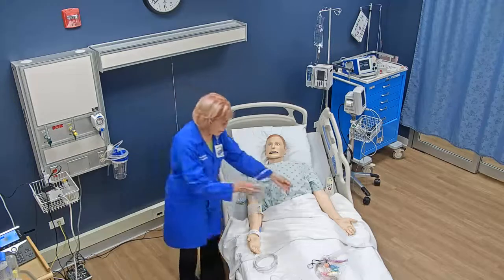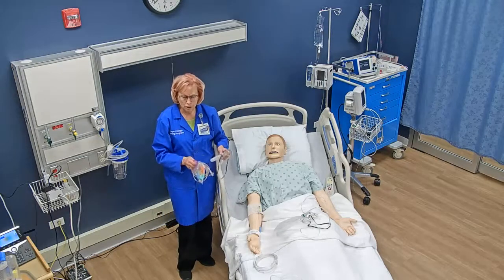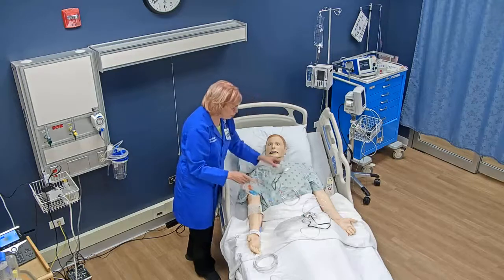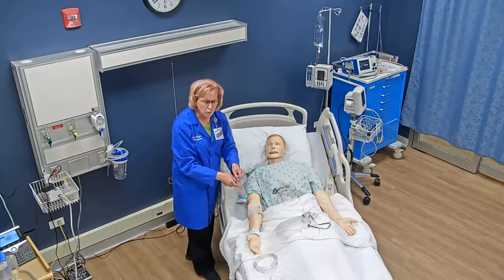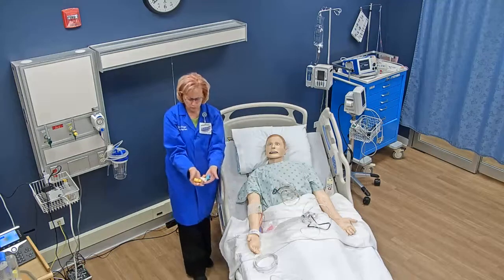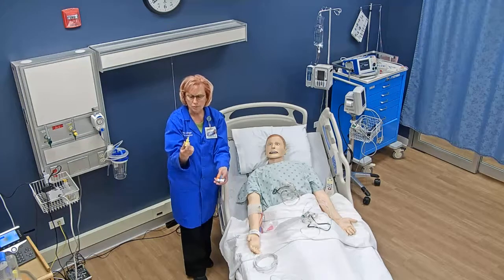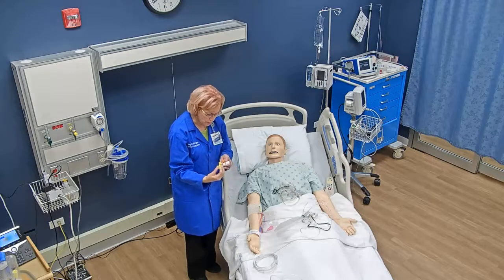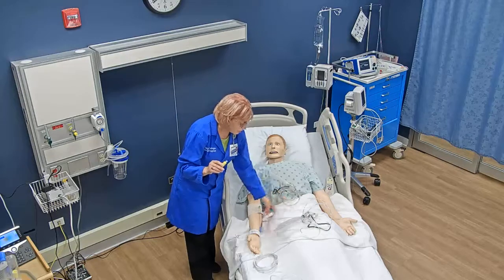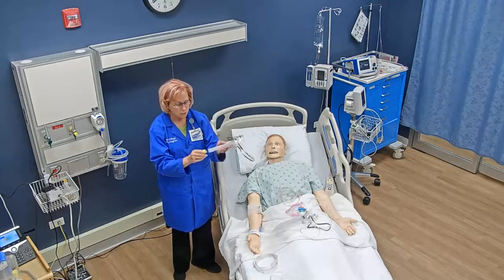The last device is the Venturi mask. A Venturi mask is used when you have a specific prescription from the healthcare provider to give a specific percent of oxygen. We often see these used in patients with chronic lung disease like COPD, where we want to know exactly how much oxygen the patient is receiving. This device comes with several different colored adapters. You don't have to memorize which color is which percent — it tells you right on the adapter. I'll set up using the yellow adapter, which says 28% oxygen at the bottom.